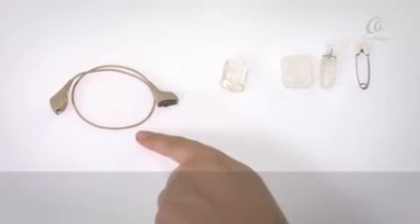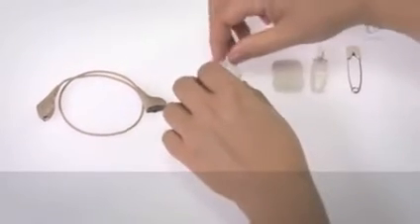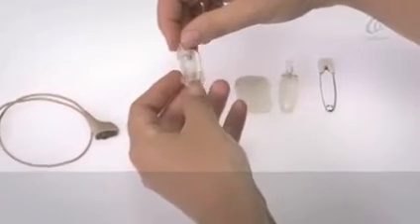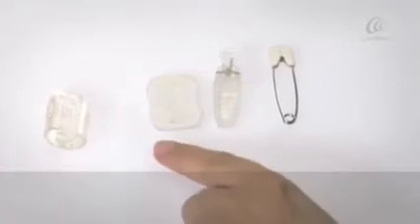Lightwear is made up of a Lightwear cable, a case and a choice of fixing aids.